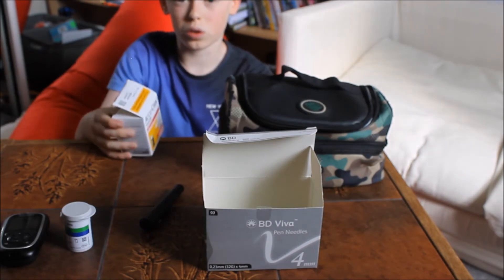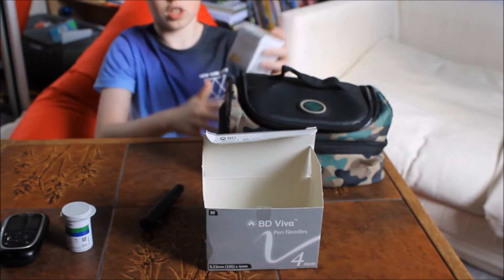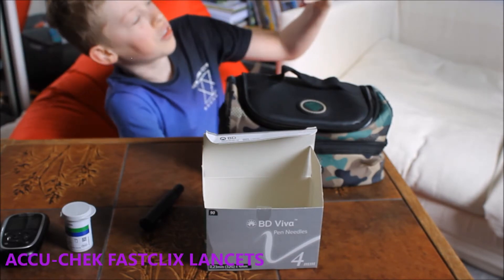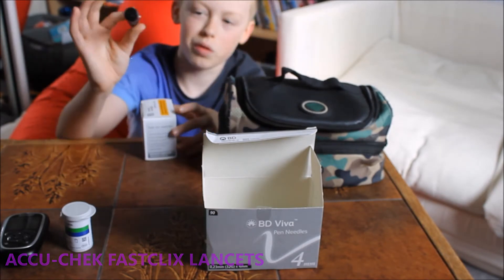In this video I'll be going over what you have to use and what to do with them. Let's get started. First, we're going to look at these. In here there are 204 fast click lancets, which we'll use with this device.